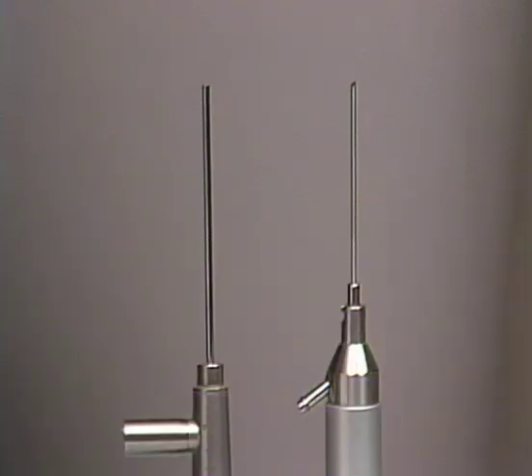Arthroscopes can differ in their lengths, measured between the tip and the hub. Since arthroscopes are pivoted about a point near the surface of the skin, the length of the instrument affects the amount of movement produced at the tip with equal movements of the hand. Longer arthroscopes produce less movement at their tips compared to shorter scopes when equal hand movements are applied, and surgeons will often express an individual preference depending on what they are used to.